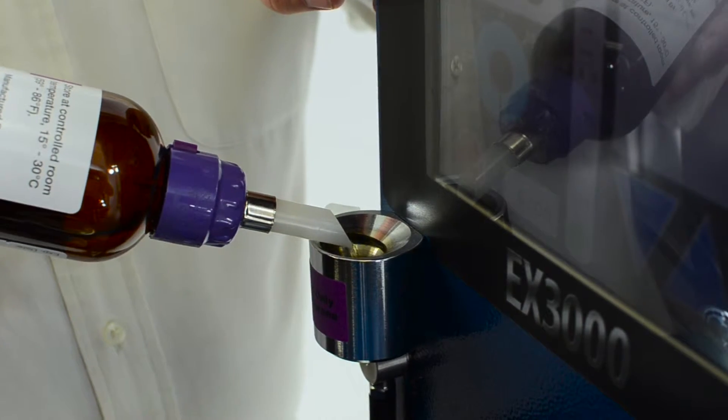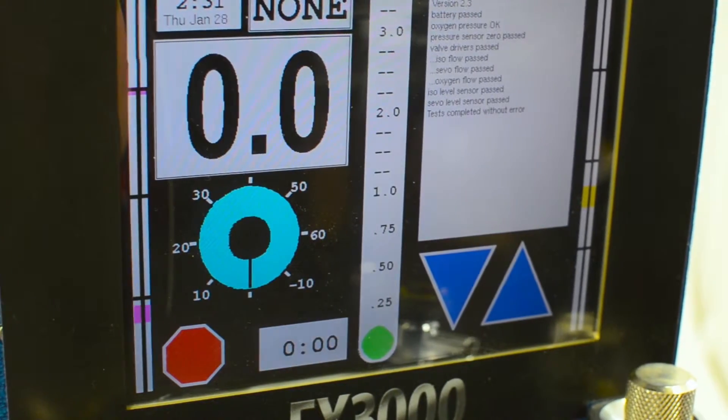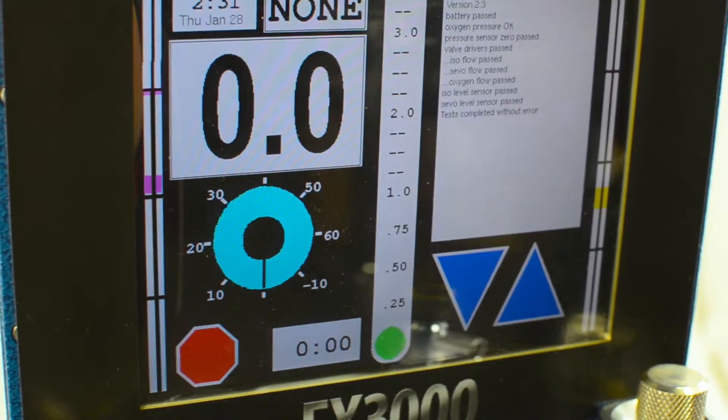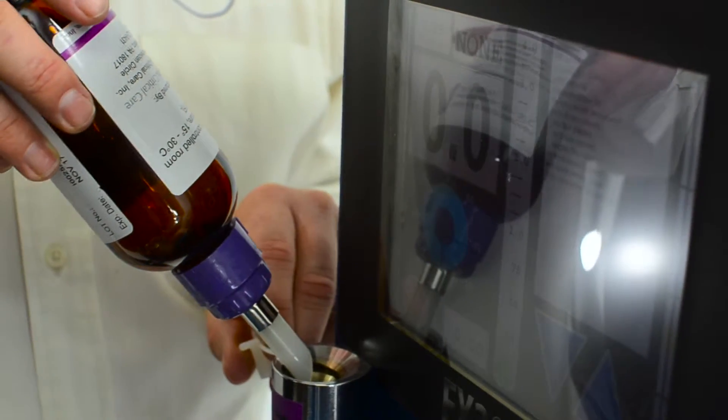And as the drug goes into the vaporizer, this is your fluid level. As the vaporizer fills the level will climb.